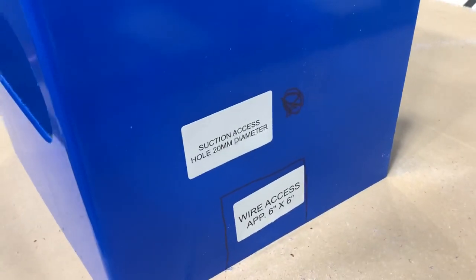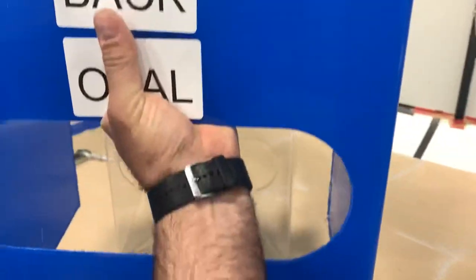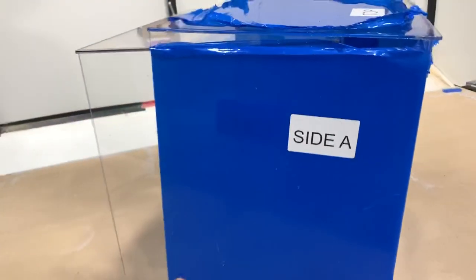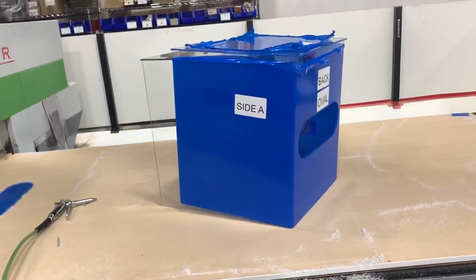That wire access is approximately six by six inches — smaller or greater, however you want it. The way we've designed ours, these two boxes can stack, so they take up less space if we need to load them in a vehicle to deliver, ship, or anything like that.